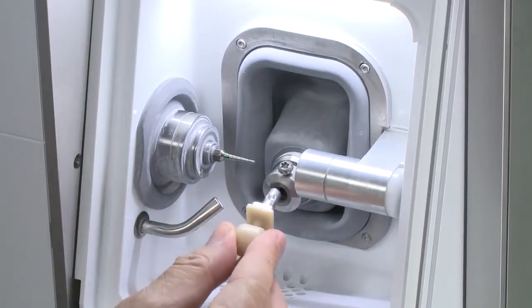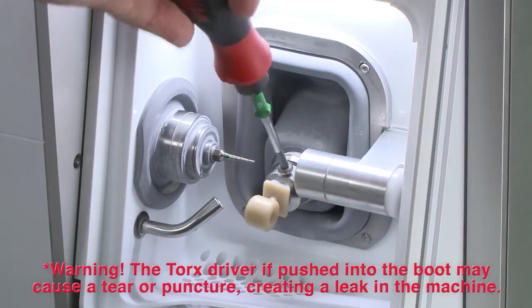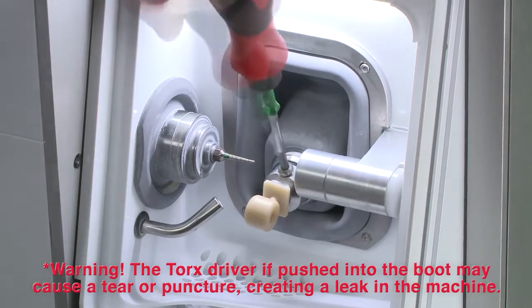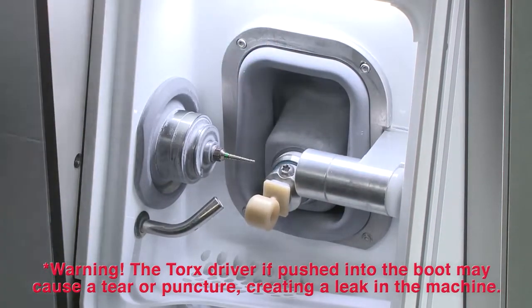Next to the spindle is the material holder. Place the material into the holder. The FastMill.io chairside mill mandrel is designed to allow the mandrel to be inserted into the material holder only one way. This ensures you always place it in correctly. Once placed, tighten the retaining screw with the torque driver provided. You will feel and hear a snap when the screw is tightened correctly.